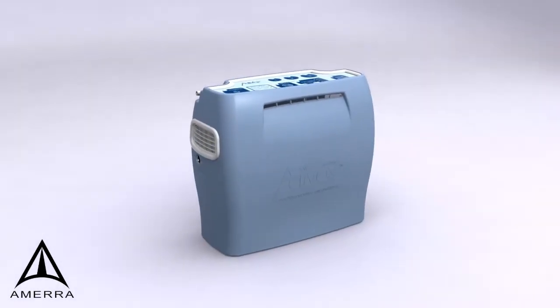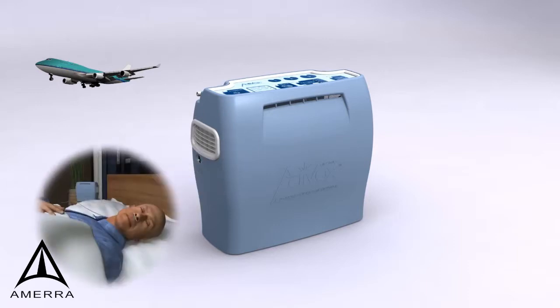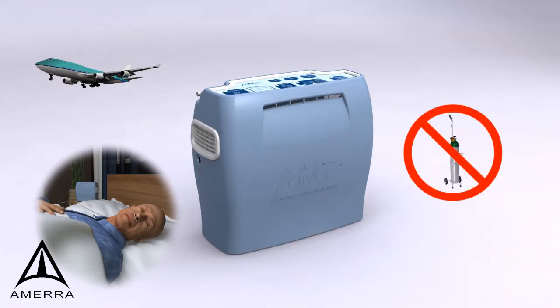The LifeChoice Activox POC is FAA-approved for domestic and international travel and is the only POC available with auto-mode and pulse wave technology. Lightweight at less than 5 pounds, the LifeChoice Activox POC helps oxygen users stay active.